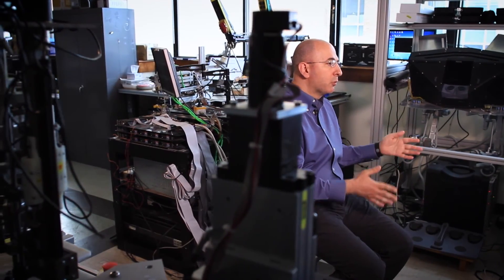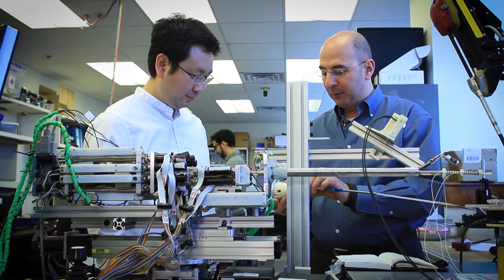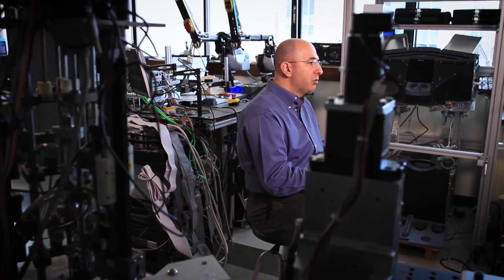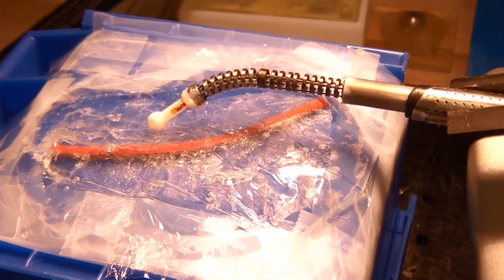Surgical robotics has always been one of those areas at the forefront of robotics, because you're dealing with a wonderful integration environment in which you have to integrate computer science, you have to integrate mechanical engineering. All of these different engineering disciplines and science disciplines have to come together to solve a problem which is helping improve people's lives. Guiding students and changing the future of surgery.